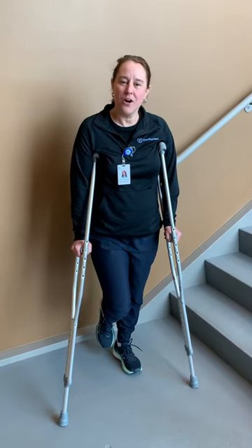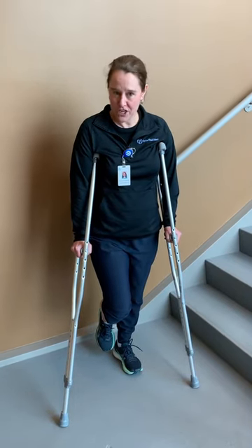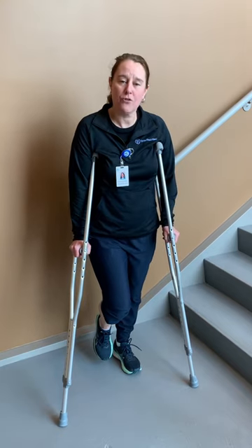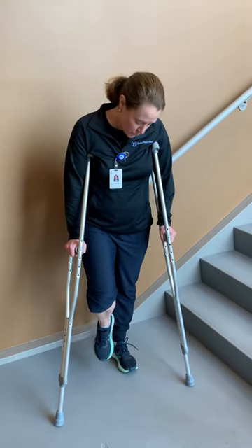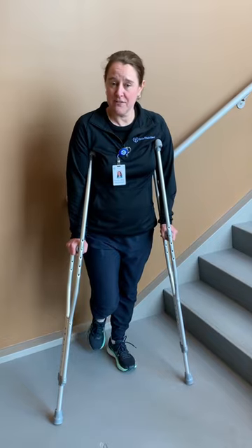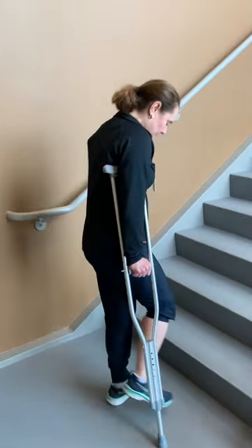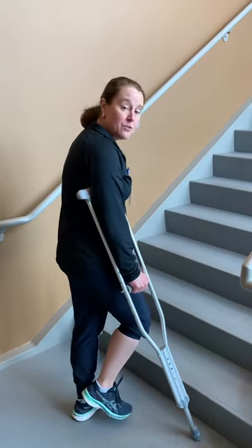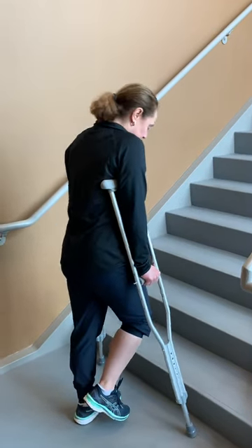This is an example of how to go up and down your stairs after an operation if you're not allowed to put any weight through your operated leg using crutches. We're going to use the right leg as our operated leg for this example. Keep the crutches down on the ground and hop up onto your good leg.